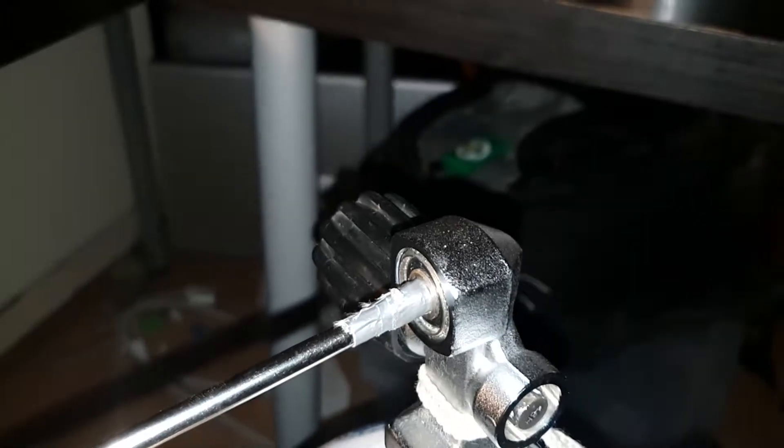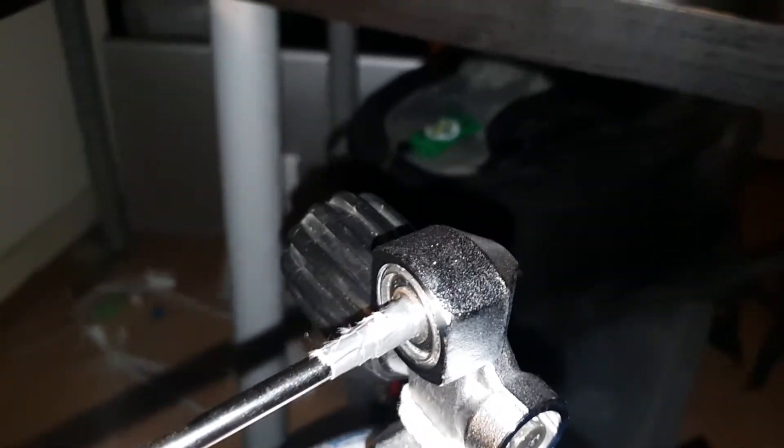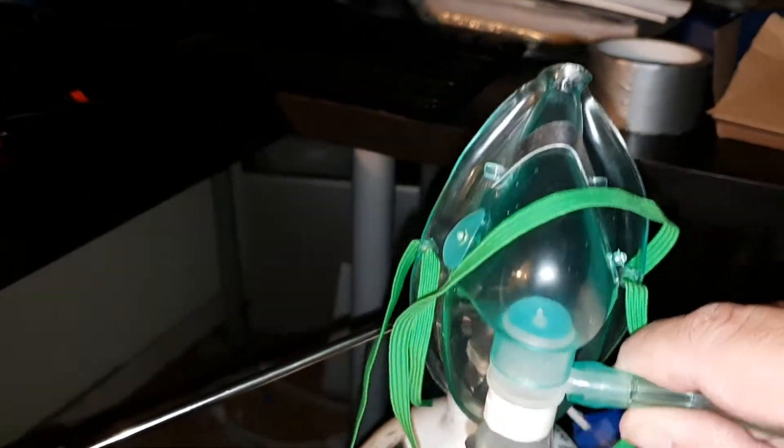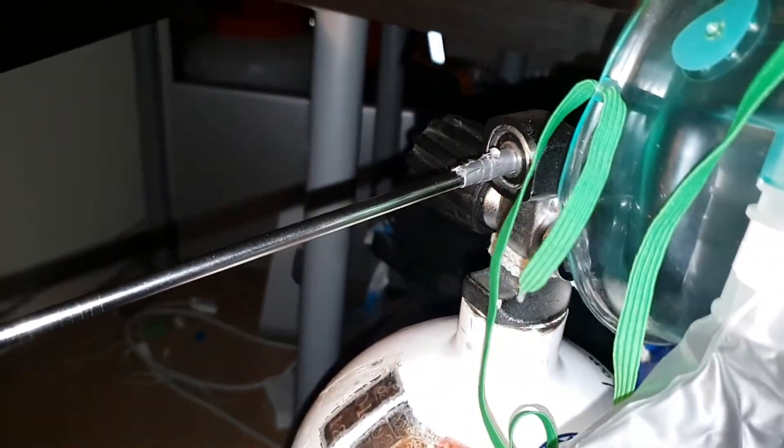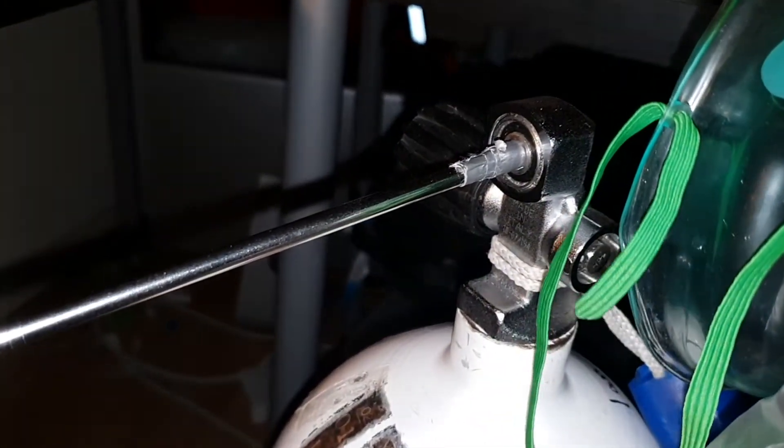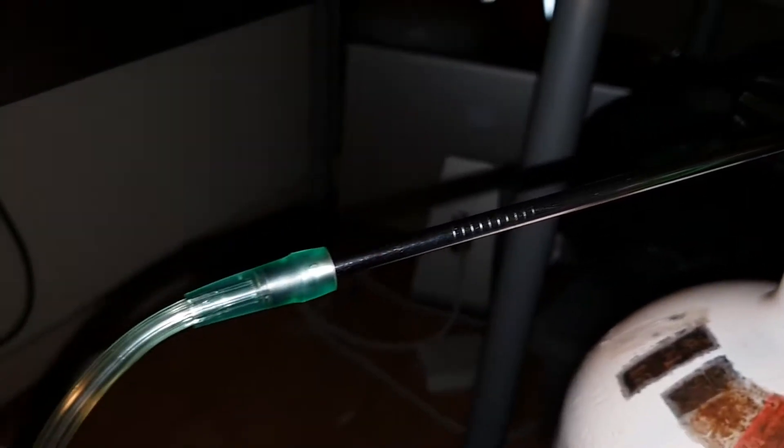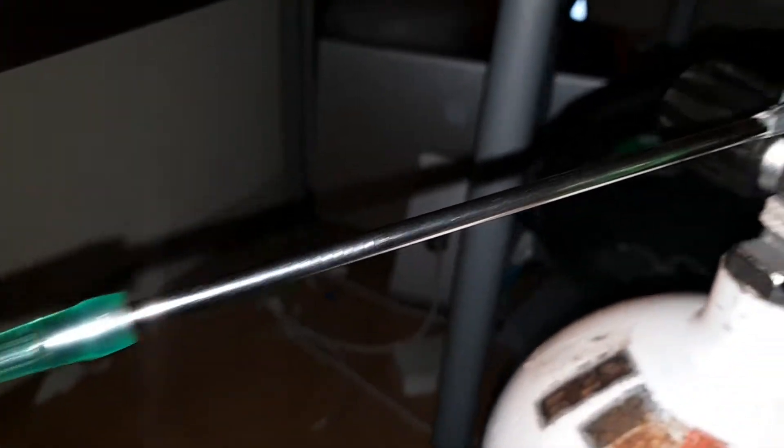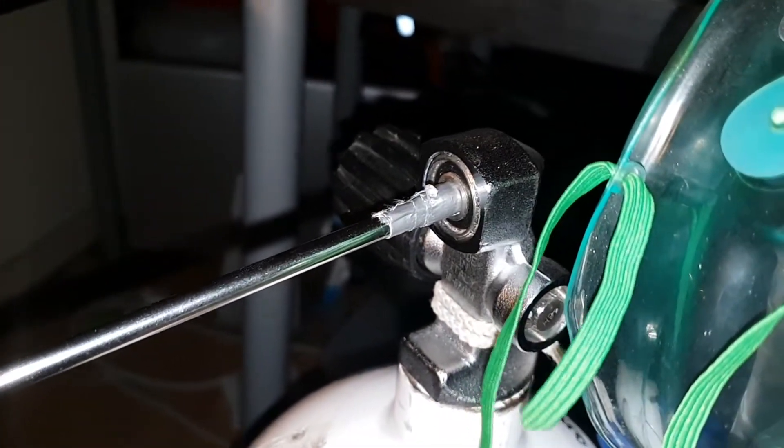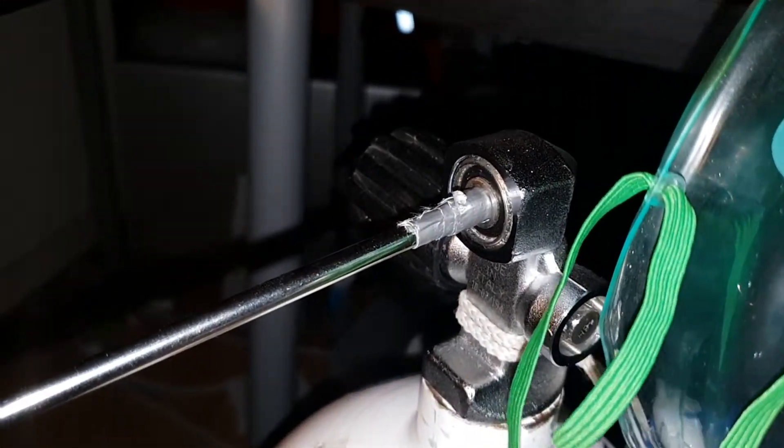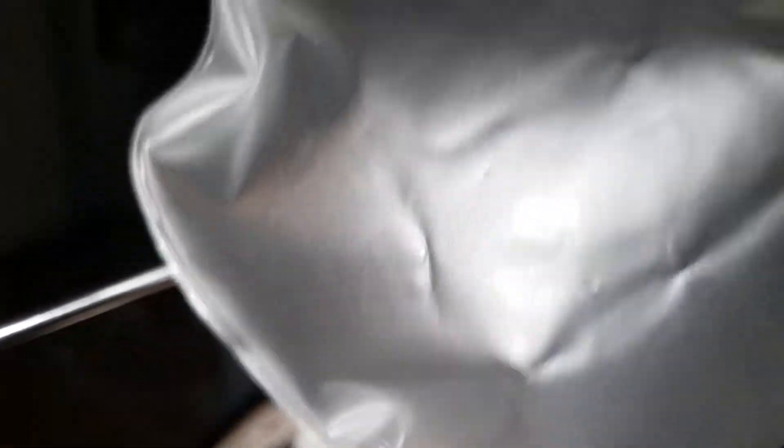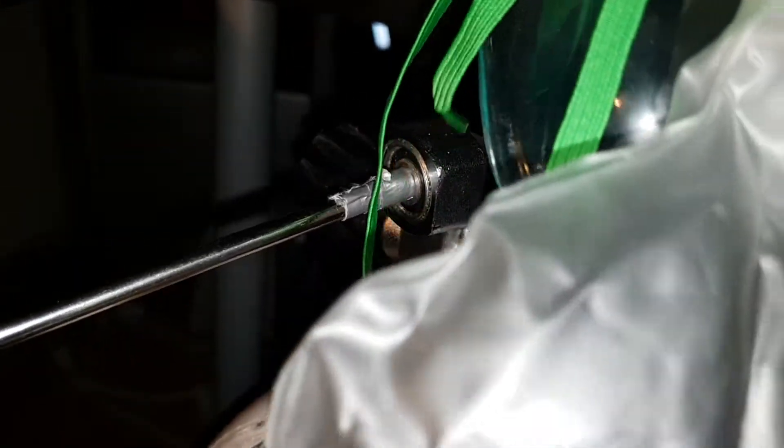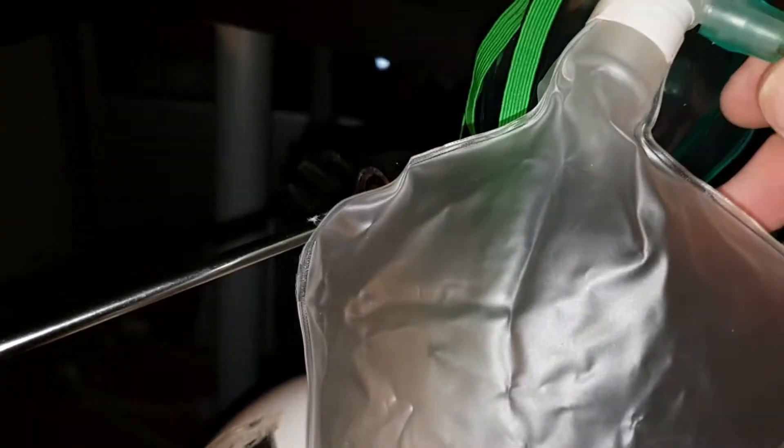And as you can see right now, with that turned on it goes quite well and inflates this bag, which shows you that oxygen is going to the mask. Okay, so obviously a bit gangly right now, but this would be one 3D printed piece and maybe a second 3D printed safety retainer if we felt it necessary.